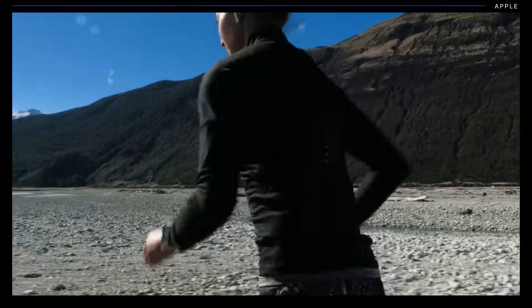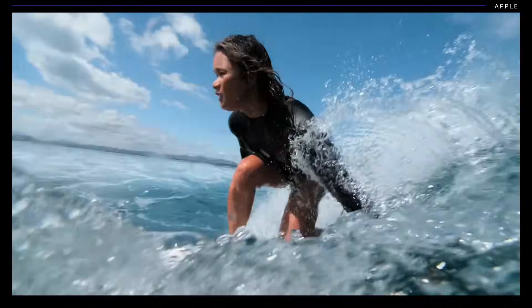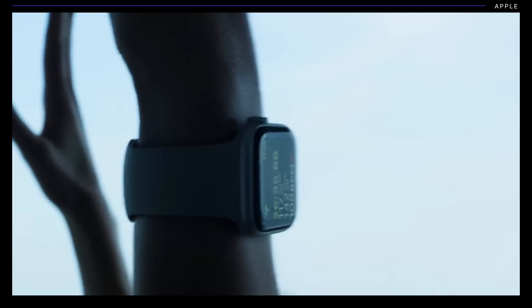This is actually a big step for Apple. You might think of this watch as a notification machine for fitness buffs who want to obsessively track every single step that they take. But with the EKG, it's trying to become something different — not just a fitness tracker, but now a health monitor. But that change opens up a host of new questions: Do doctors think it's a good idea? Are people going to use this the right way? Are we just giving people all this information that they don't even understand? We asked our science reporter Angela to tackle those big scary questions for us.